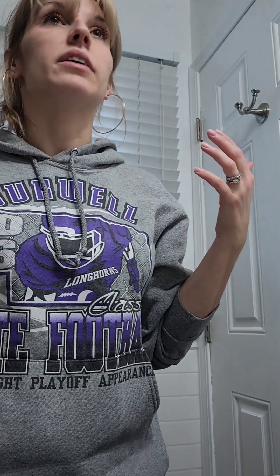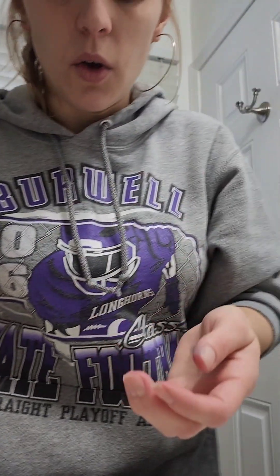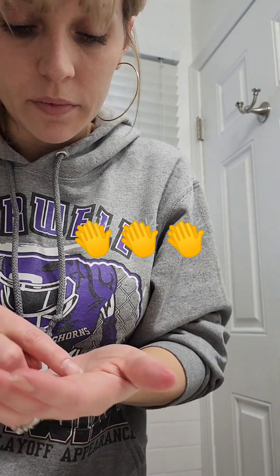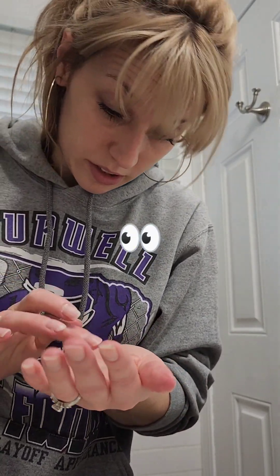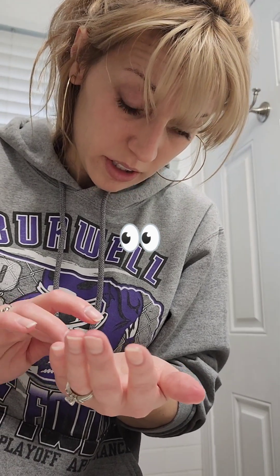This is frustrating, and I'm in a hurry, so I'm panicking. I gotta go get the kids from school, I have dinner cooking. How am I supposed to do this when I'm in a hurry? I cannot get it out. Ow, that hurt — I just touched my eyeball instead of the contact. Gosh, that hurt. Well, that was fun. Yeah, this is no picnic.